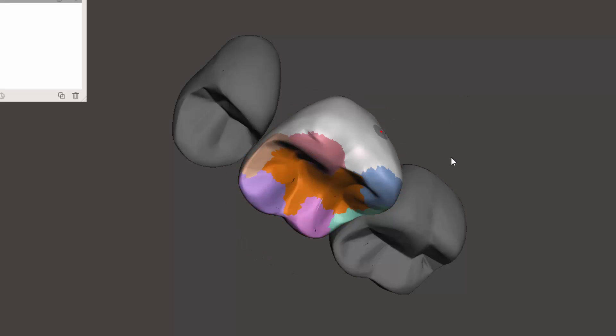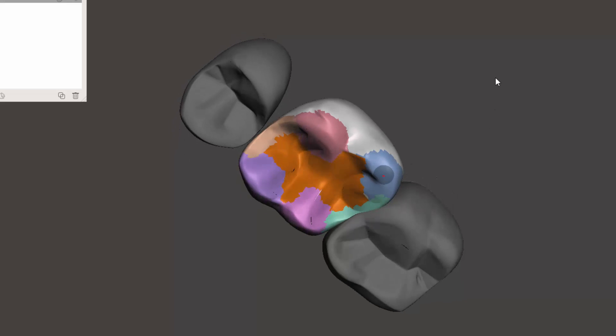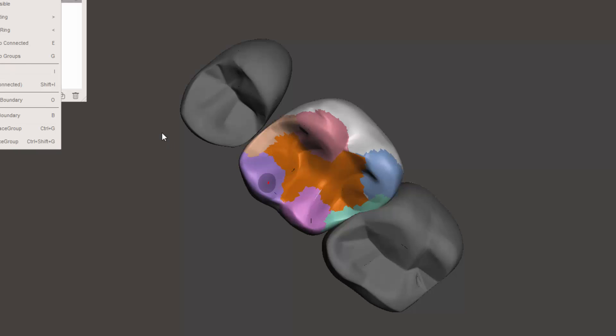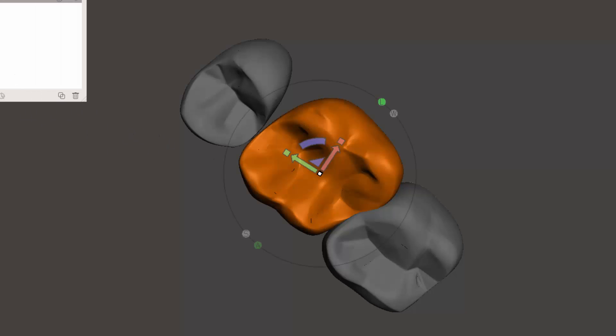So that's due to the fall off and various boundaries that are being incorporated. So when I hit Shift+T, you can start messing with the fall off and various things to try to refine it, so it's not quite as all encompassing the tooth.